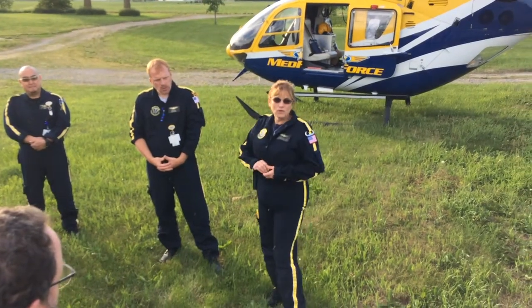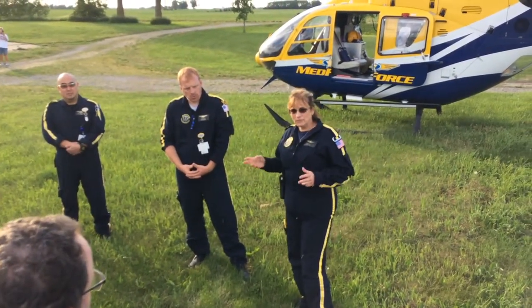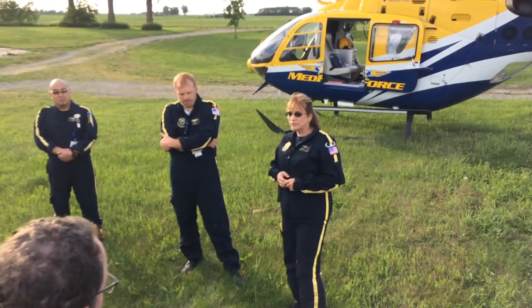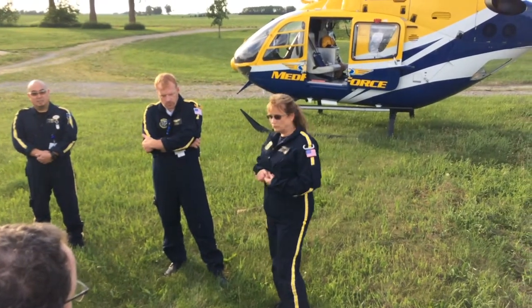Transport in my ambulance, immobilizing anybody that might have severe fractures or possibility of C-spine injury. A backboard is still appropriate for those types of injuries.